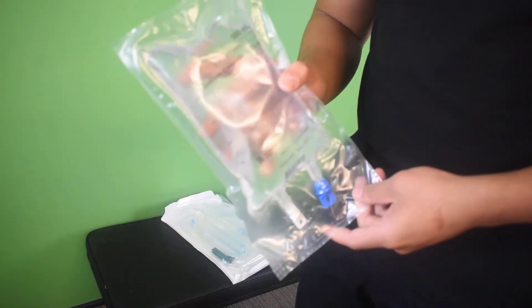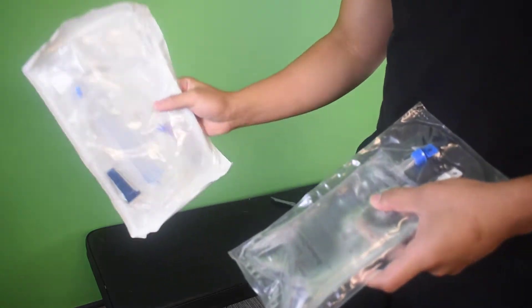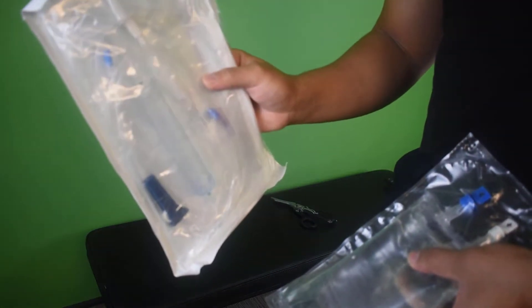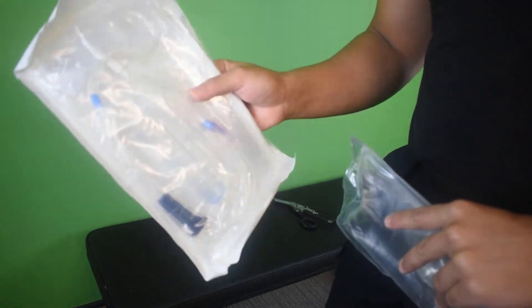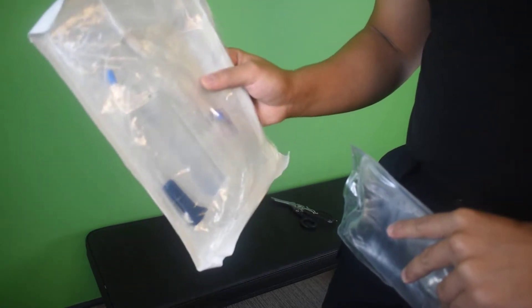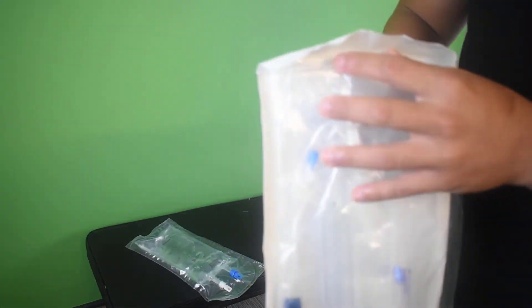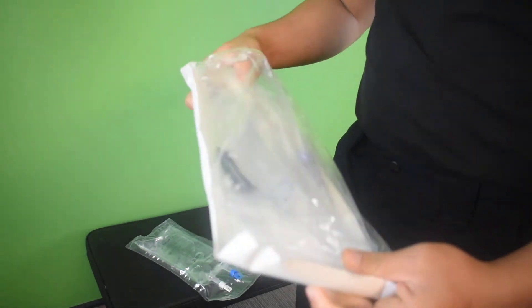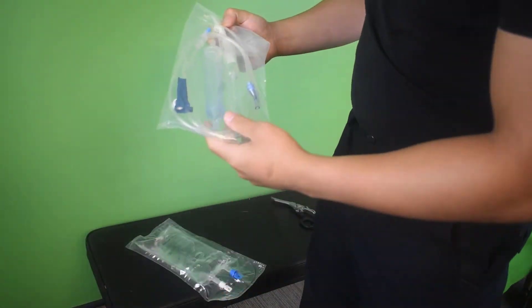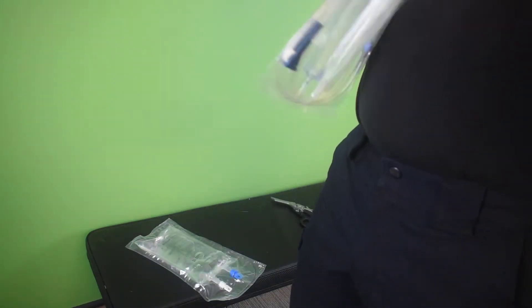Once you confirm that that is the right medication, you then want to grab your pump set, so that's this thing here, and you want to start opening this up. We'll open this up later, but I'll give you a quick run through of what the pump set is and the key features that you need to be aware of. So let's open it up.